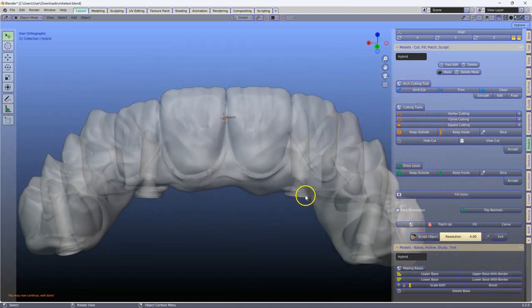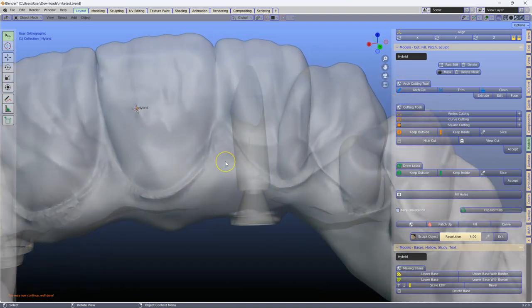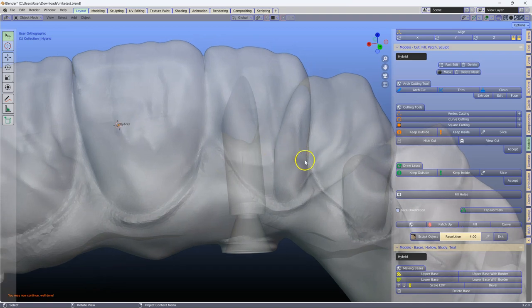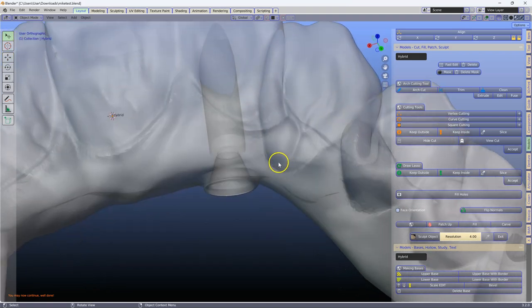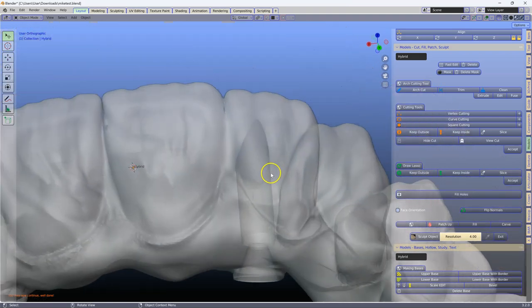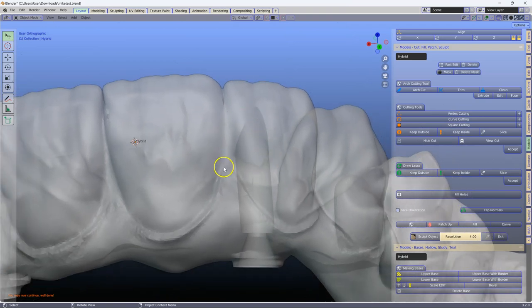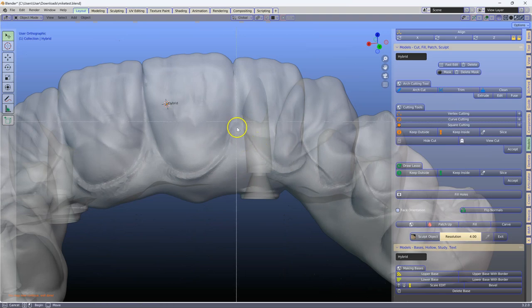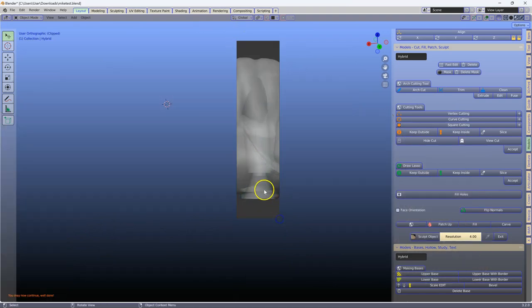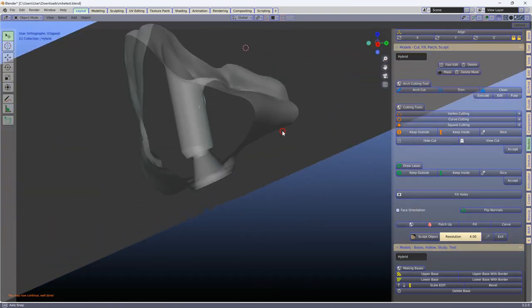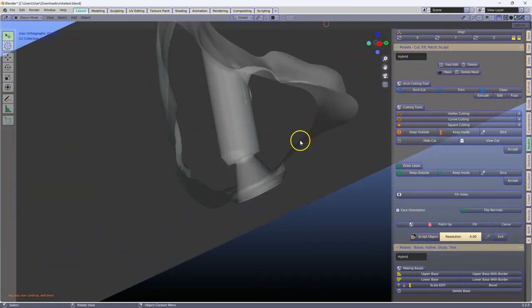Now the problem still is the screw holes. Now I don't like doing it. The preferred method is for you to go back to Exocad and create a proper mesh structure with good geometry. So I'm going to use this as an emergency method, and we're going to move this to the side.